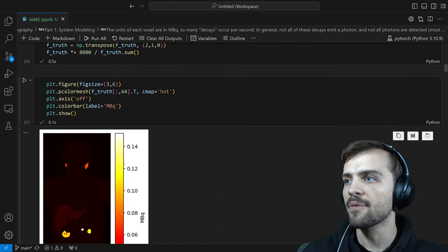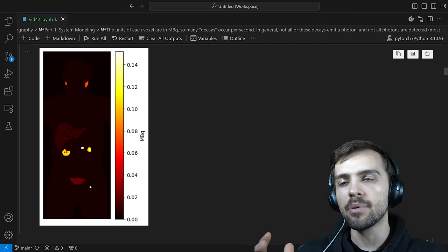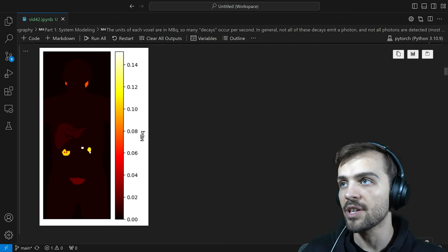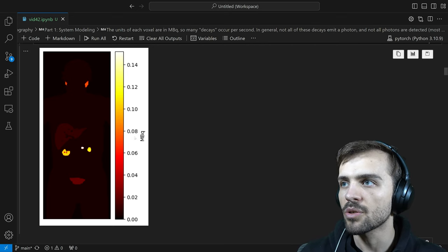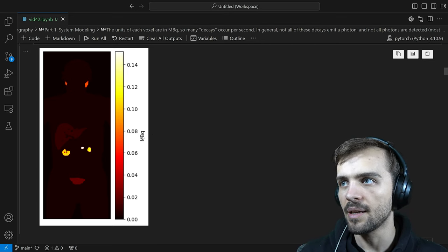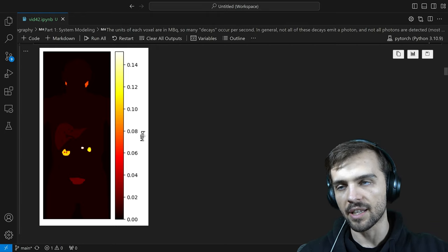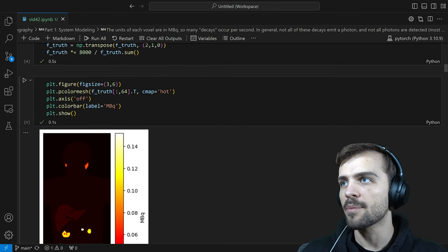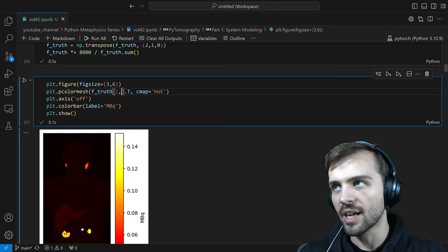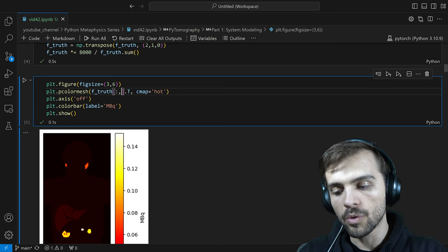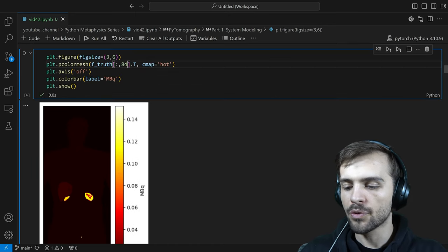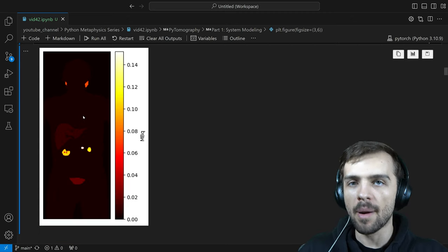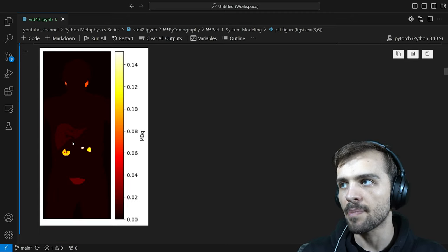Let's look at what F_truth looks like. This is a simple example of what a patient might look like when injected with radioactivity. Each voxel has associated activity in units of megabecquerels — millions of decays per second — a way to measure radioactivity. It looks 2D here, but really what we have is a 3D object. These are called coronal slices by the terminology, and I can move through different slices of the patient. What I have is a full 3D representation of activity in space.